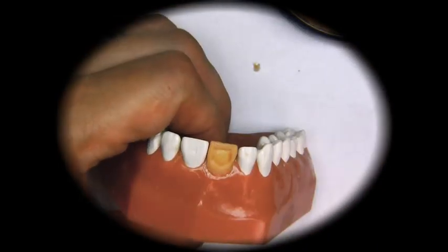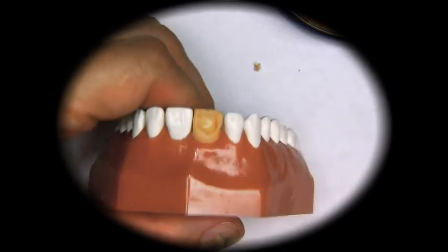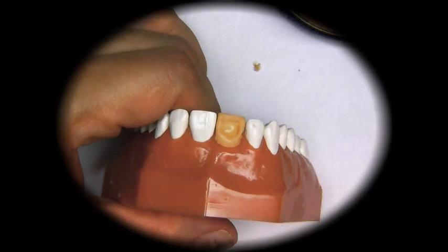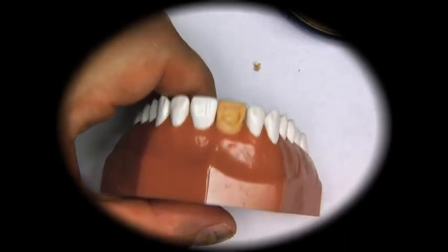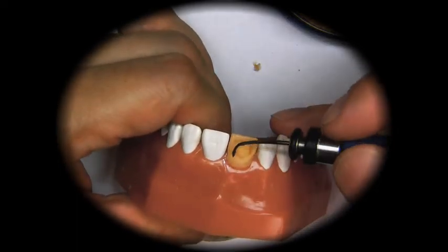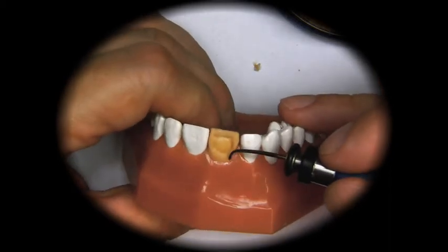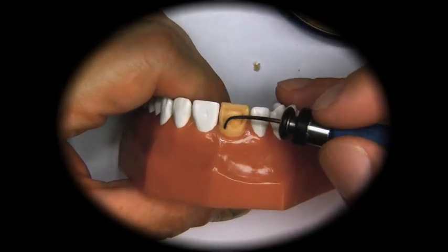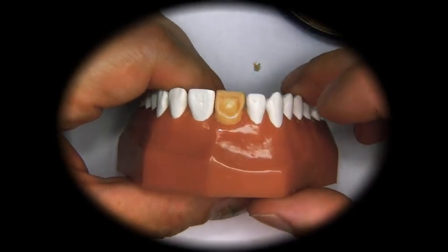And that is because when we chew our food, we want the food to stimulate the gums so that the gums don't become soft. The gums are like a muscle. If you stimulate it, they'll become strong and healthy. So now, we have the mesial aspect of the tooth. We have the distal aspect of the tooth. We have the gingival aspect, which contains the height of contour.